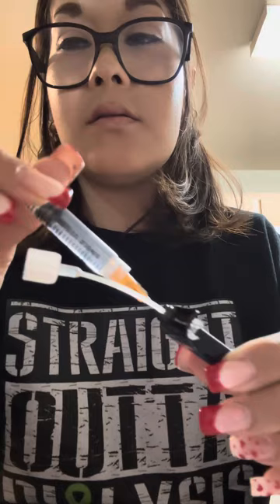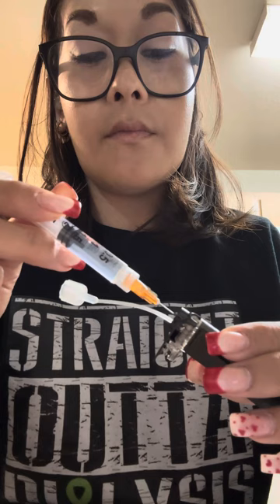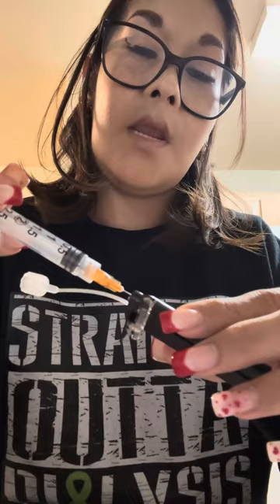Sometimes it goes in easy and sometimes it doesn't. There we go — goes in nicely. And you take it out. You have to be very careful because you're going to stick the cap back on; sometimes you poke yourself with it. Always put it in a sharps container.